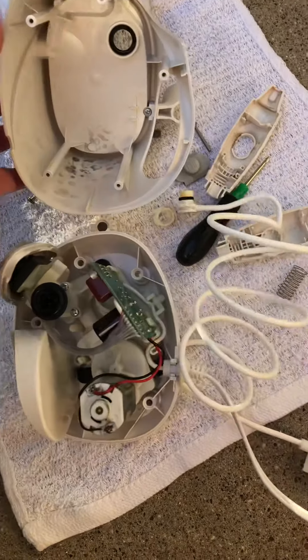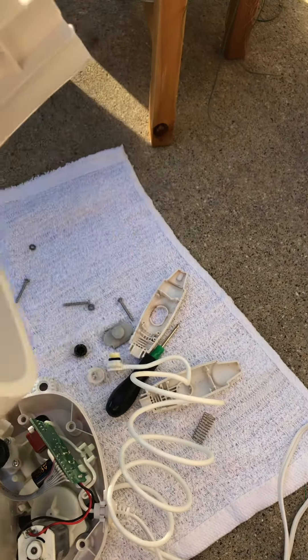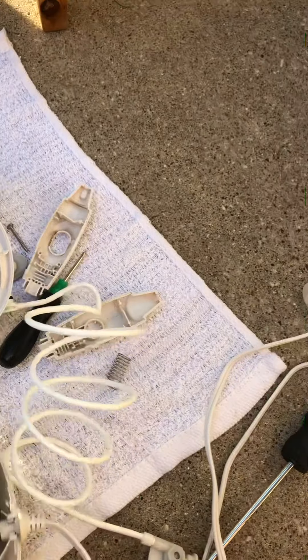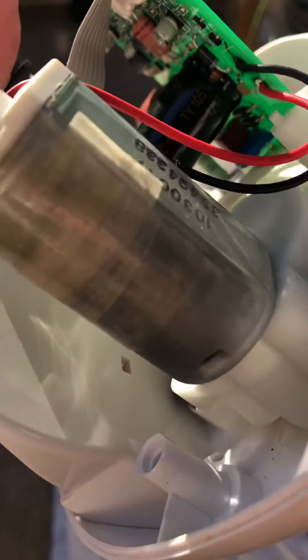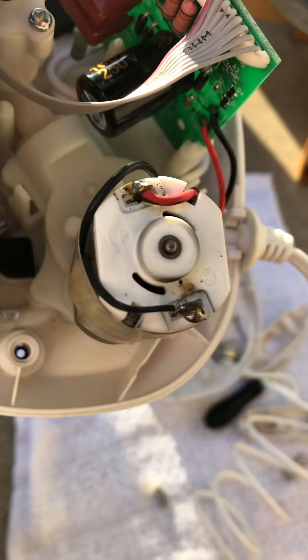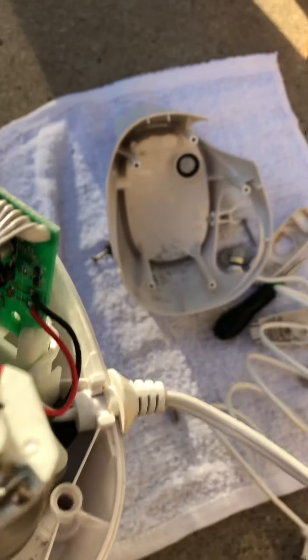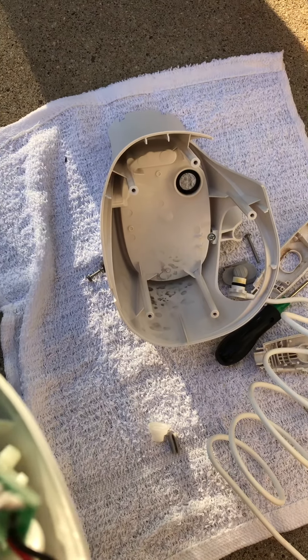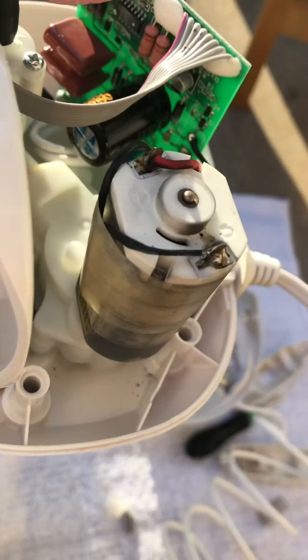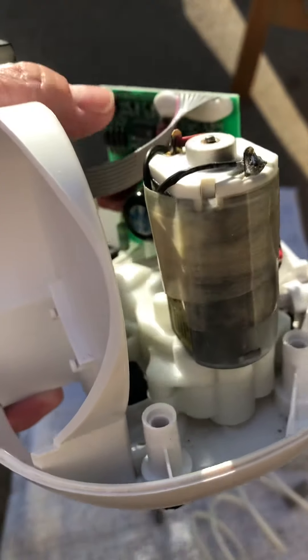This thing here has something in it. However, that black there is right next to this motor, so I have a feeling that there may be some sort of dusty discharge from that motor. I don't believe that that is mold — I think that is some sort of motor dust from here. You can see a little bit down there, but this thing hasn't had any water get in it.